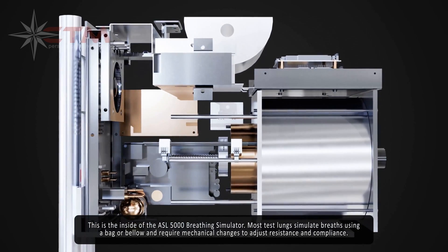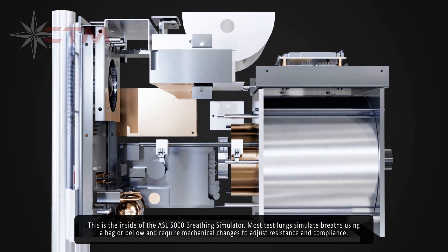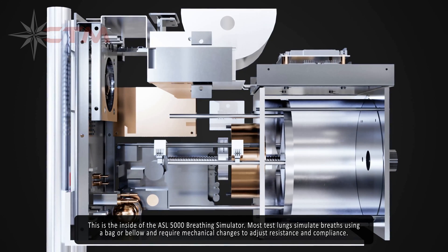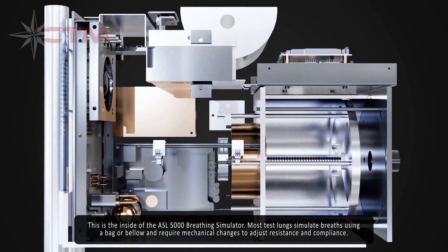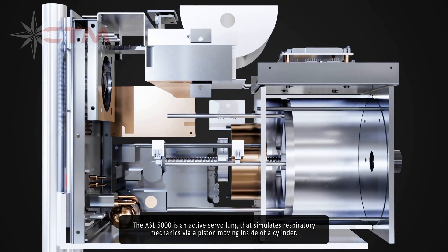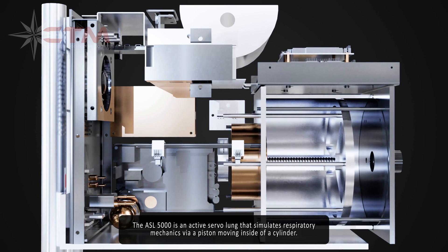This is the inside of the ASL5000 breathing simulator. Most test lungs simulate breaths using a bag or bellows and require mechanical changes to adjust resistance and compliance. The ASL5000 is an active servo lung that simulates respiratory mechanics via a piston moving inside of a cylinder.